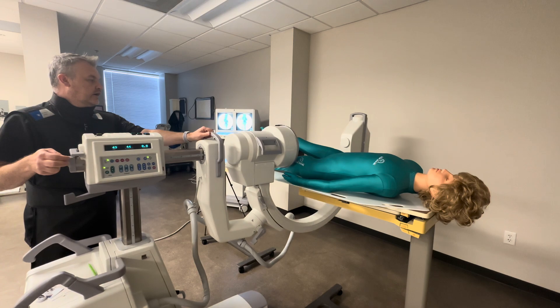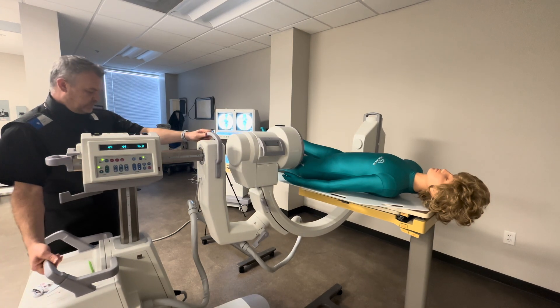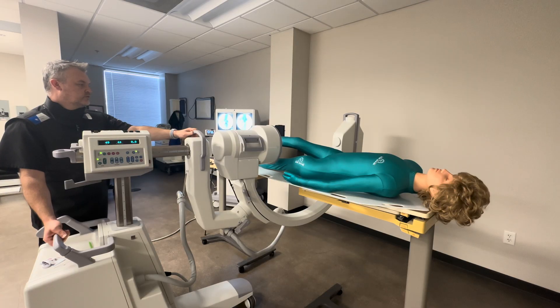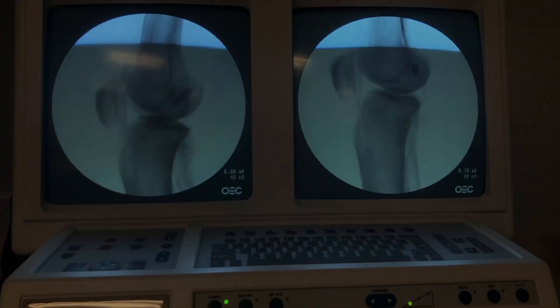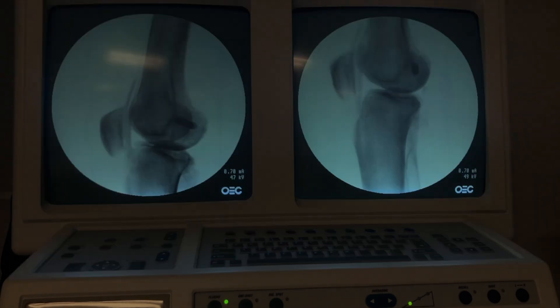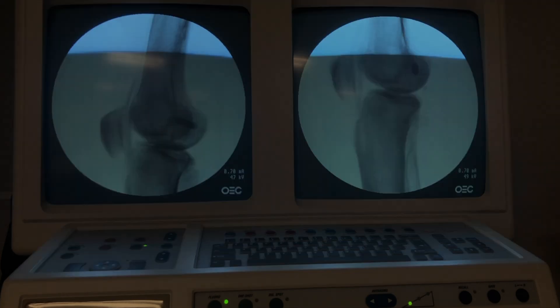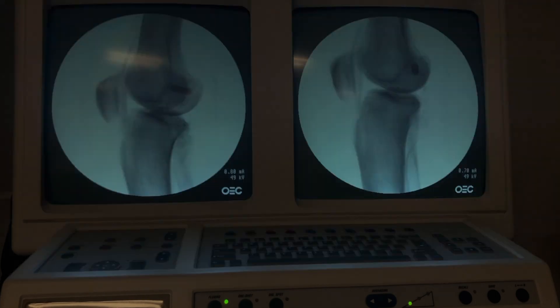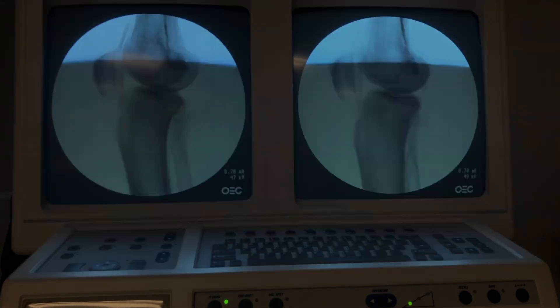So now I overcompensate the other direction — wagging towards the head. I now slide south to bring my knee joint back into the center of the screen. Come down a little bit further. Get it centered first. So that looks a little bit better.